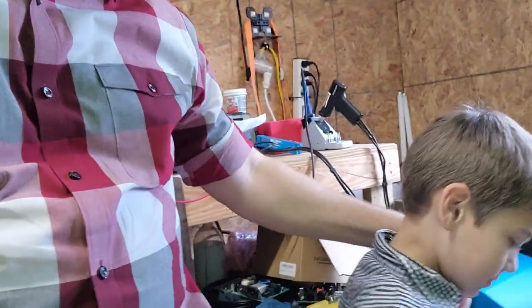Alright guys, I have to go back out and finish my Christmas photos - I got this box and ran out as fast as I could. I'd like to thank my little helper Mr. Seth for helping with today's video; he was following me and didn't know why I was so excited to receive a box in the middle of Christmas photos. That is the IPA 3100 from BC Biomedical - neat little device. I can't wait to put it into service next week and see how it really runs.